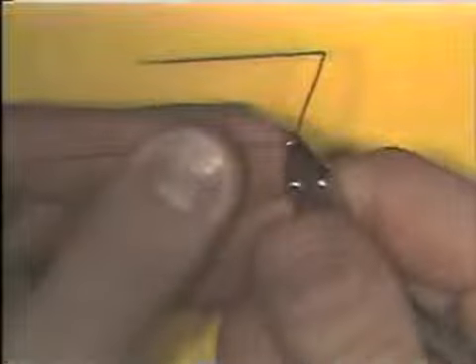The wire is tried back on the pattern, and this third bend was made a bit too sharp, so some adjustment can be made by placing the beaks of the plier back at the corner and opening the bend slightly with your fingers. Now the wire at this time fits directly over the lines of the pattern and it is flat on all three portions.